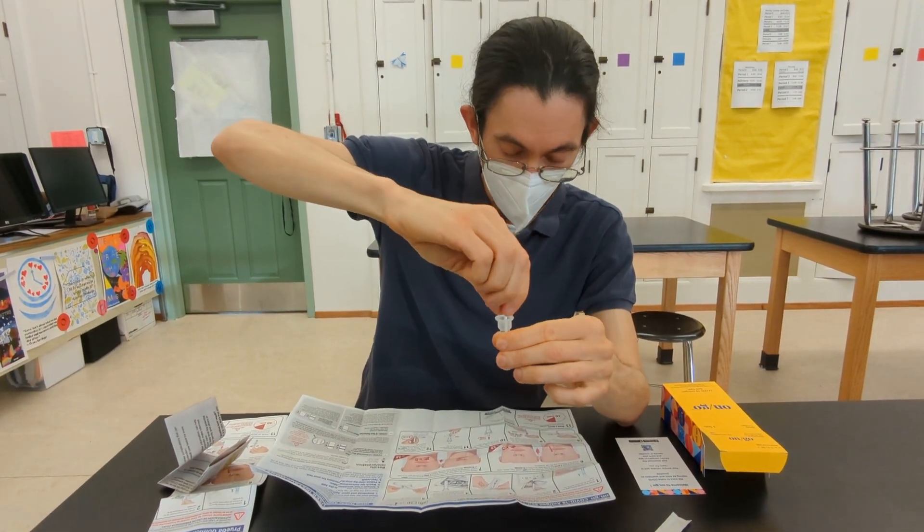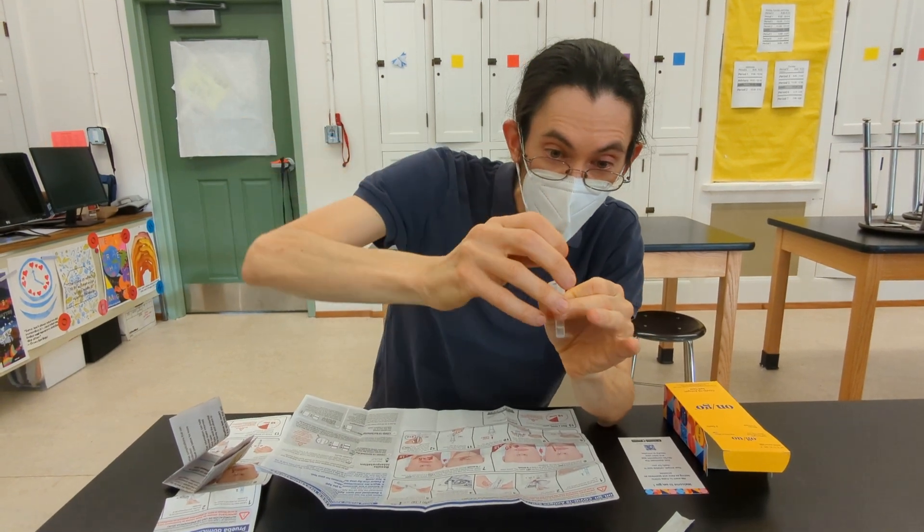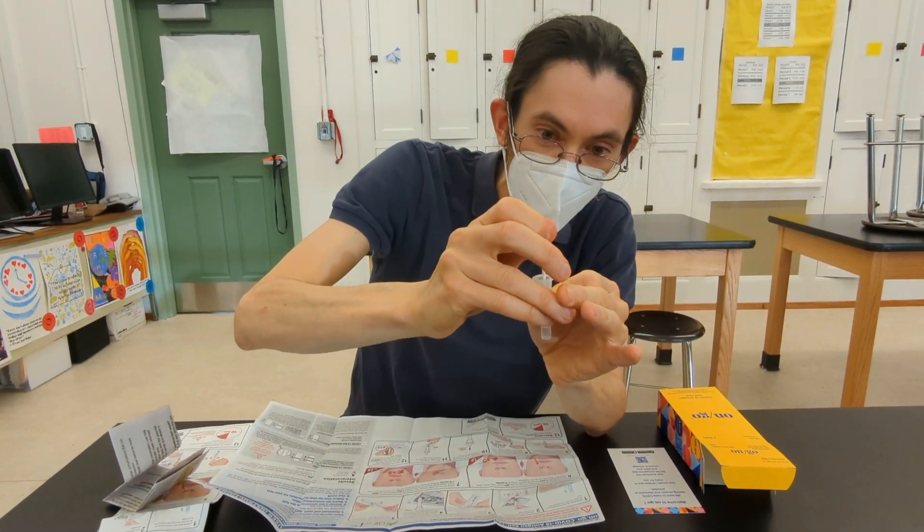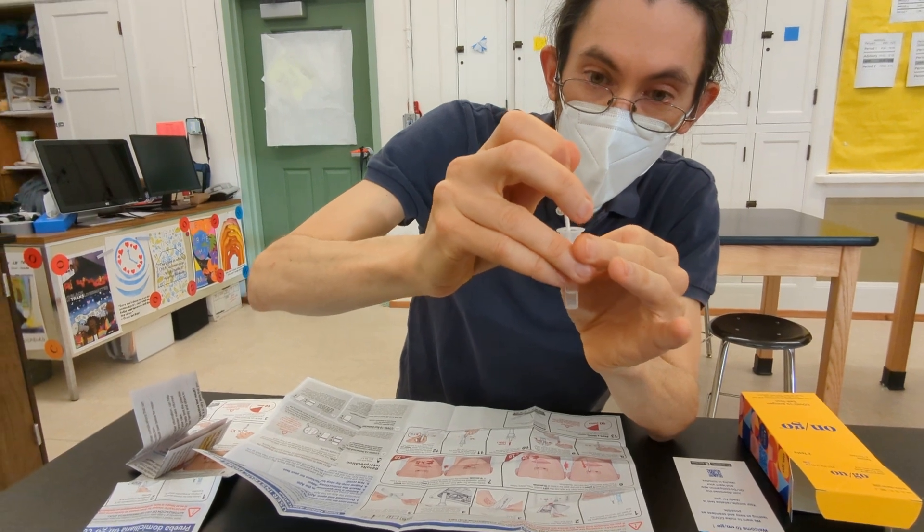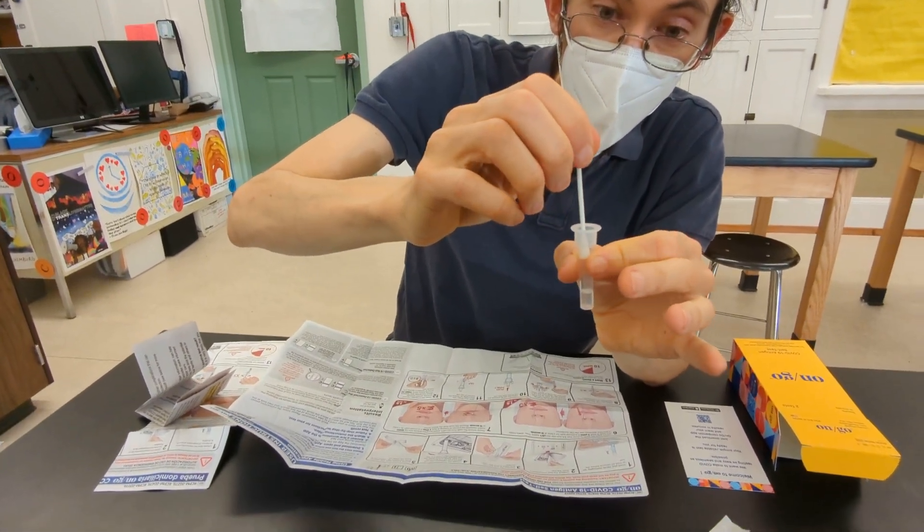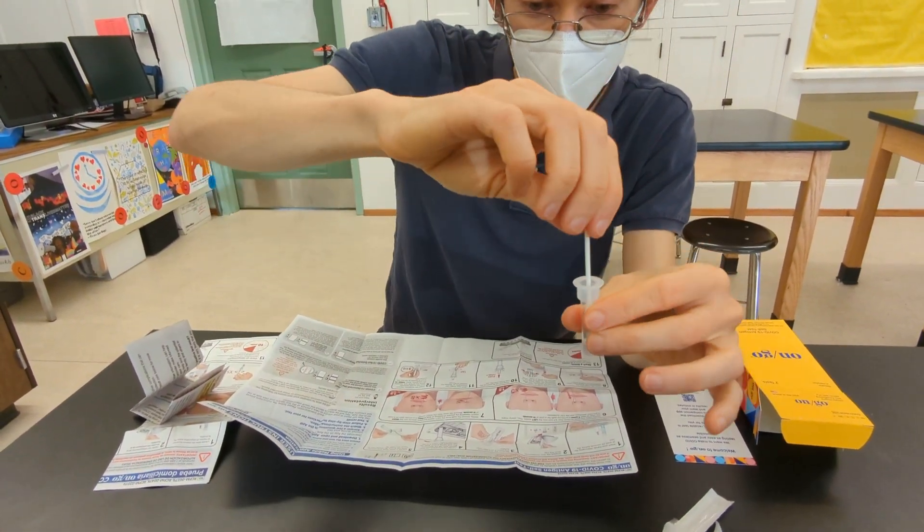Once you've done that, you're going to gently squeeze so that you can kind of squeegee off the liquid and keep as much liquid in the container instead of on the swab.